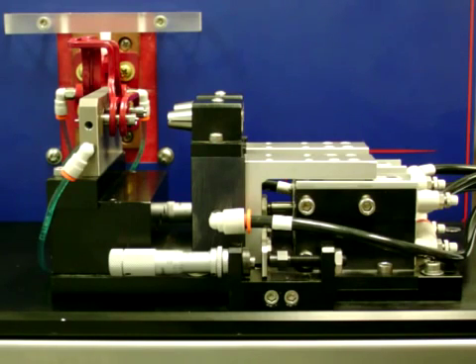The many features and precise control of this unit serve as a base for many variations of catheter forming systems offered by Plastic Weld Systems, such as tip only, tip and eye form, tip and drill, plus many other combinations of operations required in today's competitive manufacturing environment.